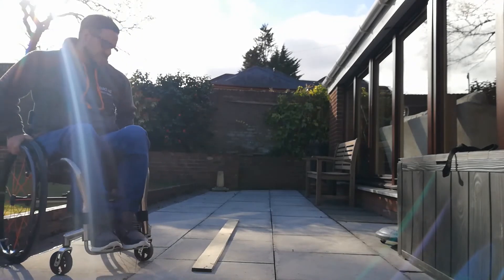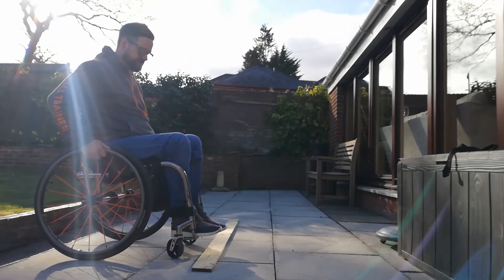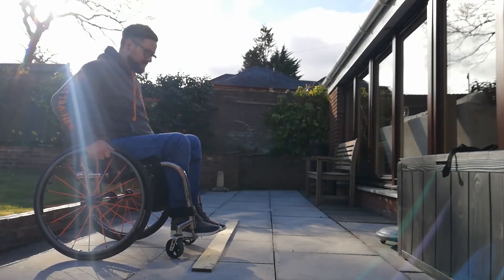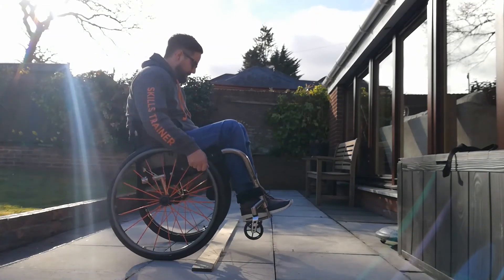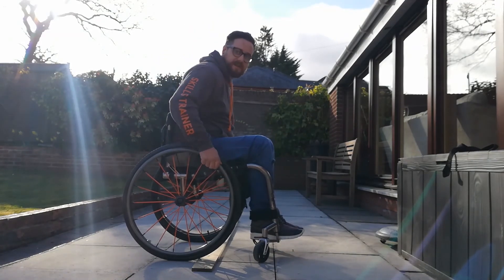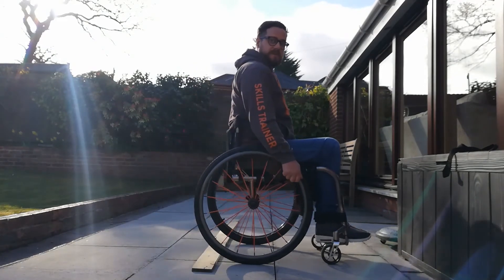If you can't quite manage this threshold in a back wheel balance, it's similar to what we talked about flicking over the rope earlier. If it's not too wide, you can flick up and over, put your wheels down on the other side, lean forwards, and then it's a big tricep push to get up and over the threshold.